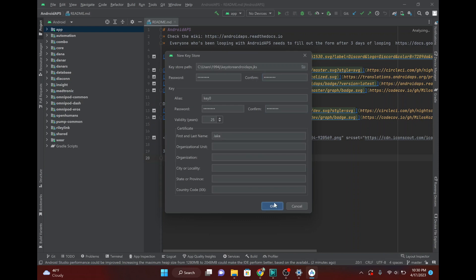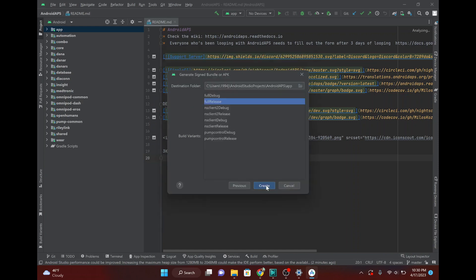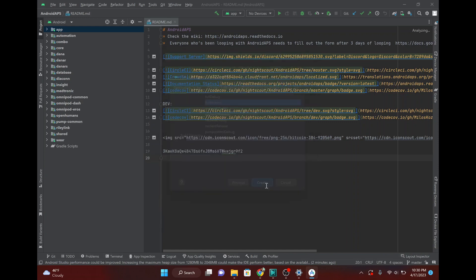There we go. Okay. All right. And then what you want to do is, you want the full release. And then just hit Create.